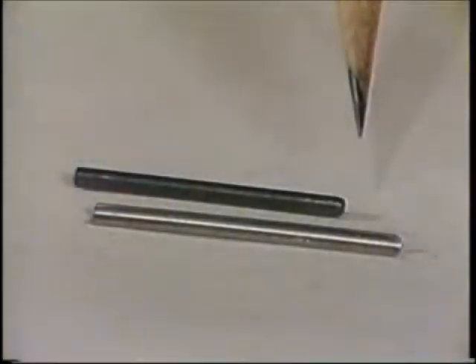The graphite marker is used to delineate the survey line, which defines the height of contour at a given path. Replace the marker if it is worn. Rotating the marker in use will extend the service life of the marker. Use the metal sheath to prevent fracture of the delicate graphite in use.